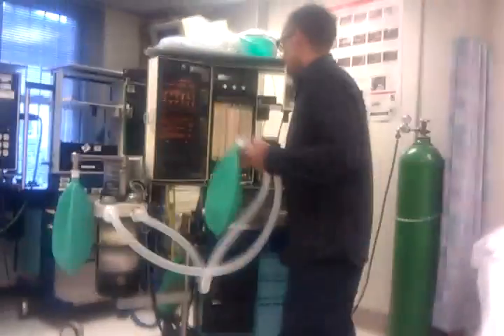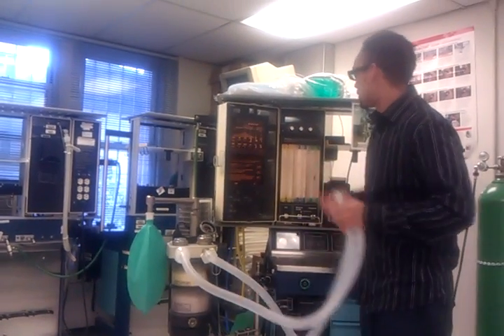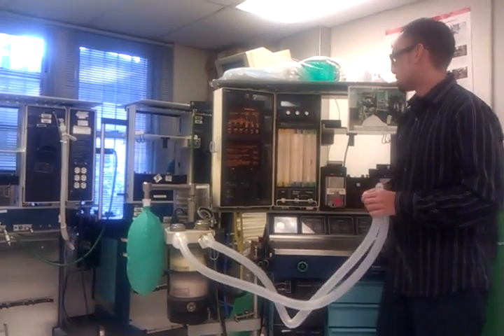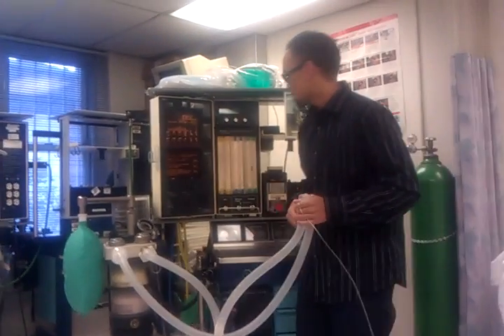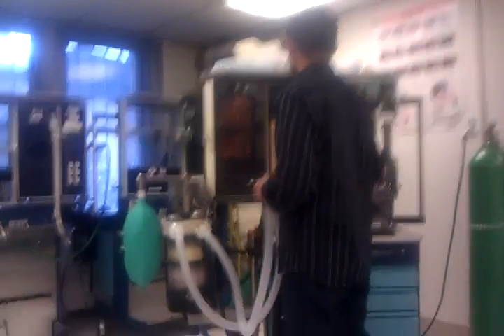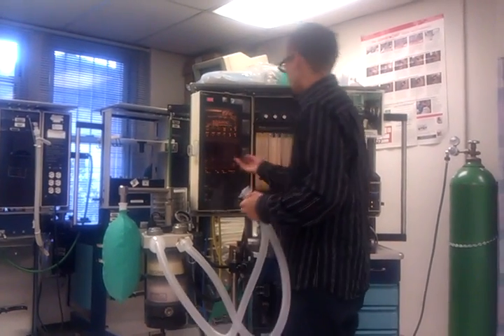Now I'm going to check my alarms. I'll take off my simulated lung. First I'm going to check my capnograph. Then I'm going to check my SpO2 probe — if I had it, it checks out. I'm going to check my spirometer alarms, my high pressure alarms, my low pressure alarms. It checks out too.